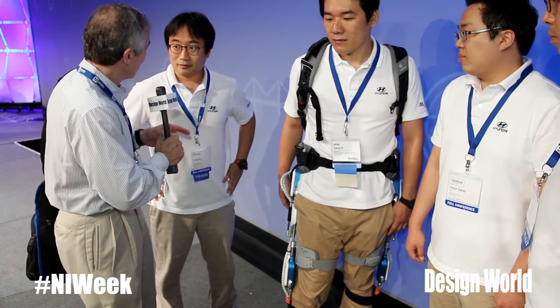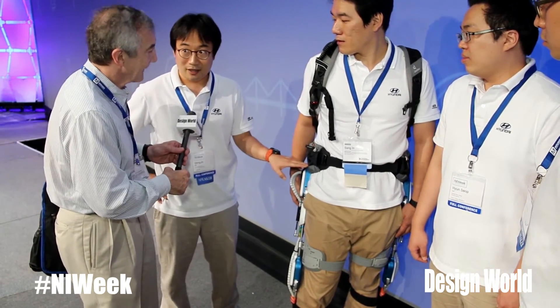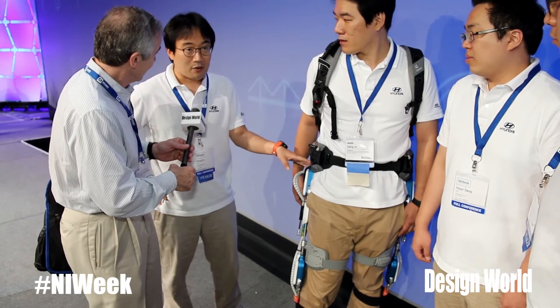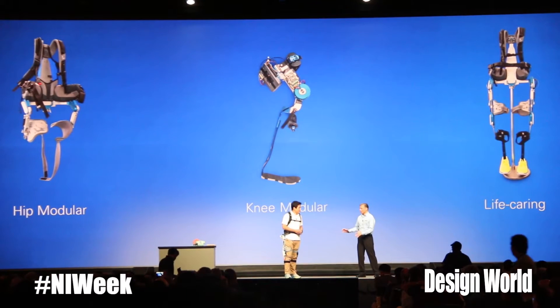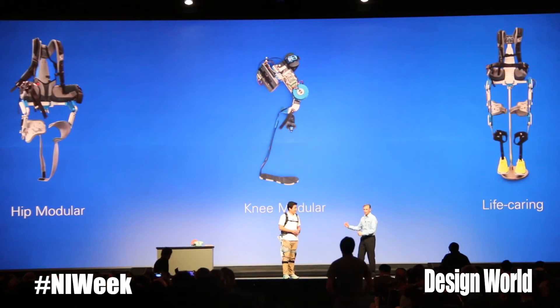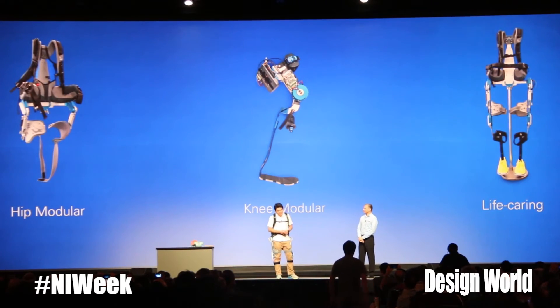What's the rating on the electric motors? The rating of the electric motor is 200 watts, but we can increase or decrease the power of the motor. Everything depends on the injury degree of the wearer or the age of the elderly person.